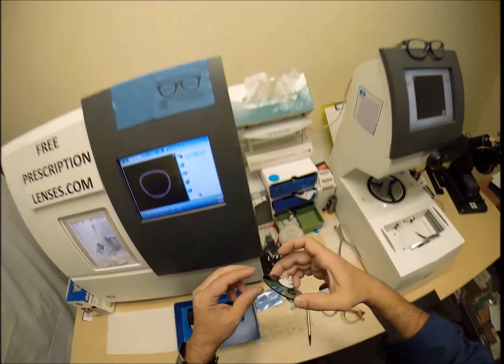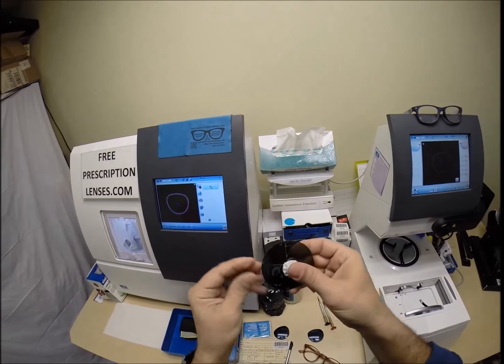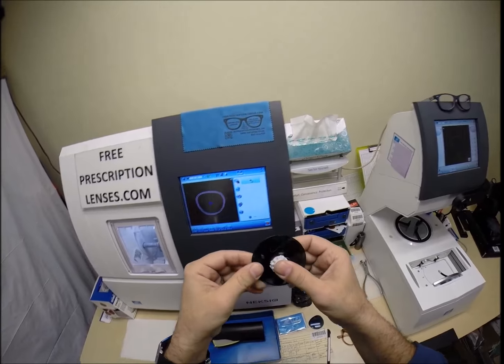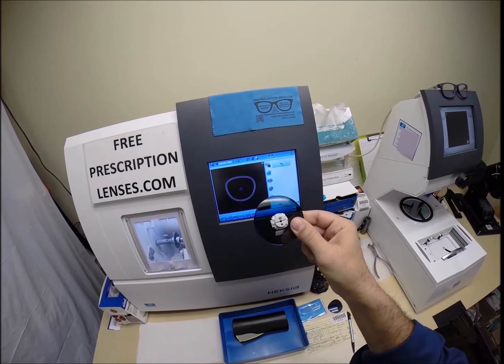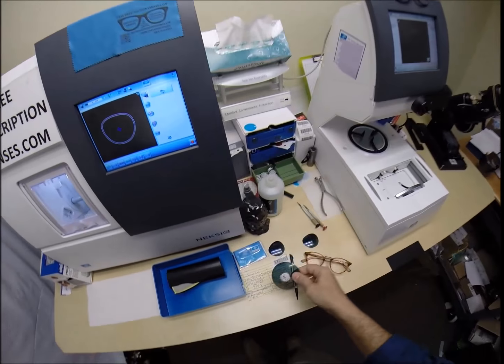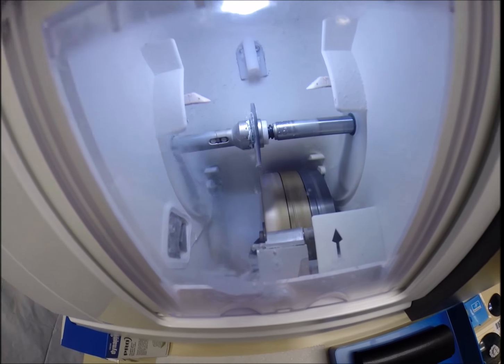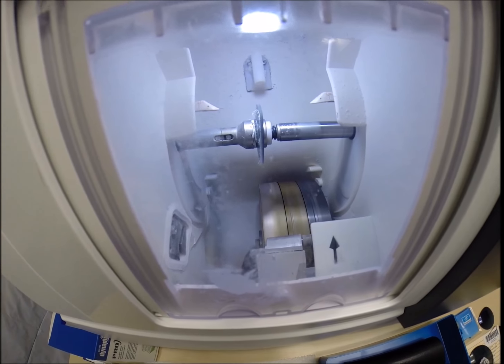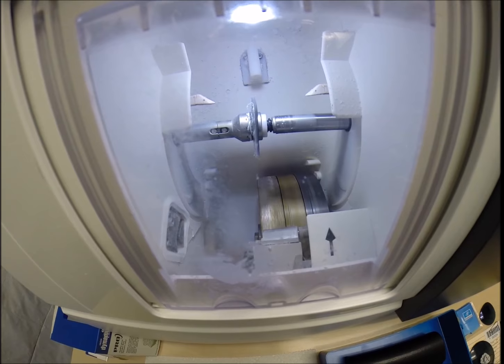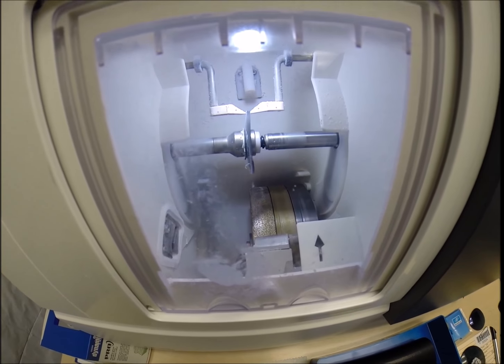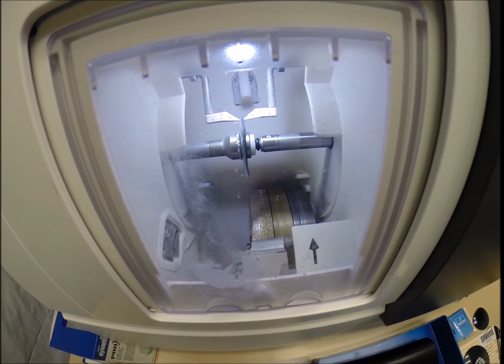Now, I am using polycarbonate lenses. Polycarbonate is 40% thinner and lighter than regular plastic. They are virtually unbreakable. They are high-impact ballistics-grade lenses and have 100% UVA and UVB protection built into the lens. We know what the sun's harmful ultraviolet rays can do to your skin. Your eyes are eight times more sensitive than your skin, so you have permanent sunscreen for your eyes.